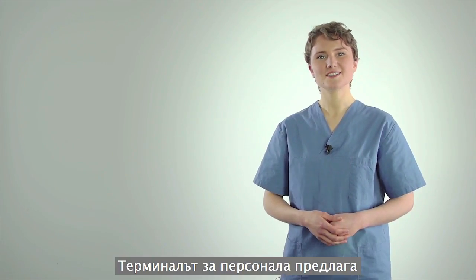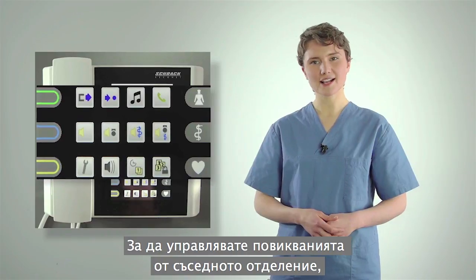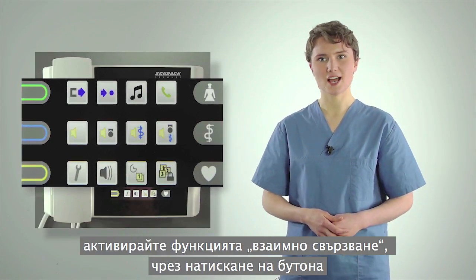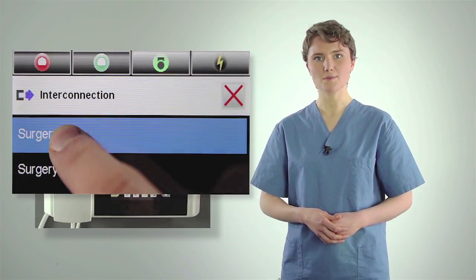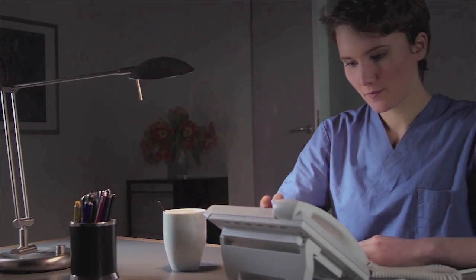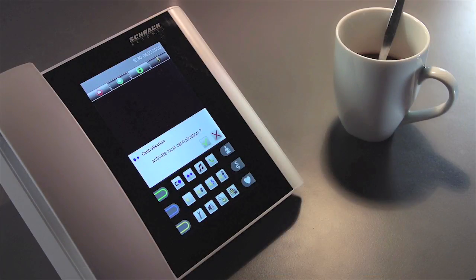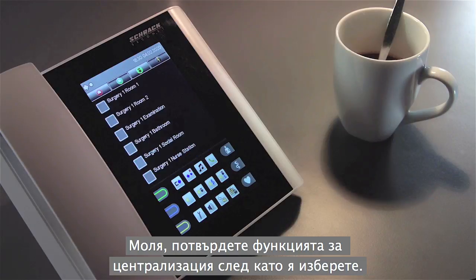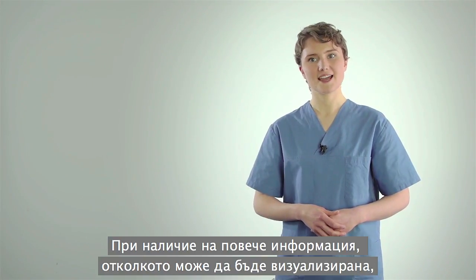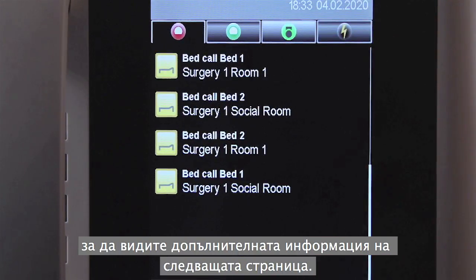The staff terminal offers some useful additional special functions. To manage the calls of a neighbouring ward, activate the interconnection function by pressing the button and then select the desired ward from the list above. During the quiet night hours, you can activate the centralization function. This silences the optical and acoustic call displays in the rooms. Please confirm the centralization function after selecting it. If more information is available than can be displayed, swipe vertically on the display to see more information on the next page.